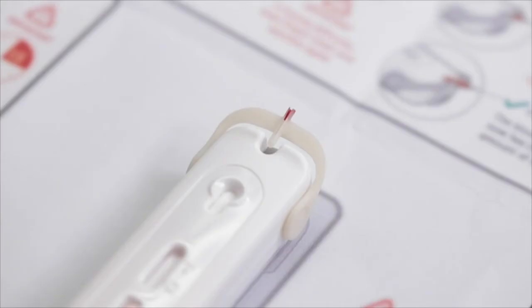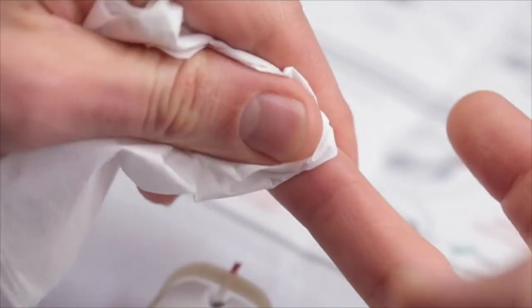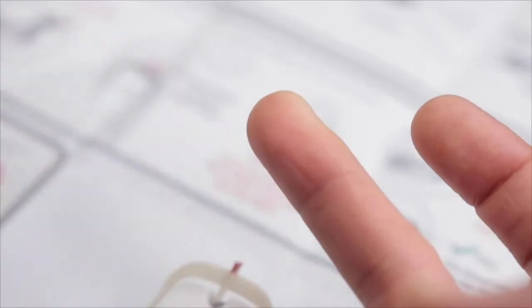If you are having trouble filling the tube or blood has smeared on your finger, take a moment and wipe your finger clean.